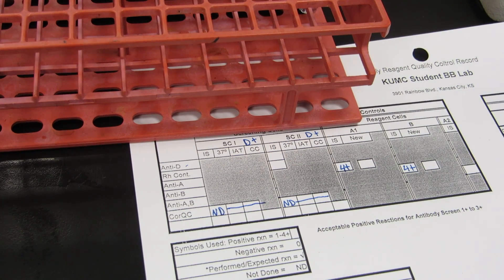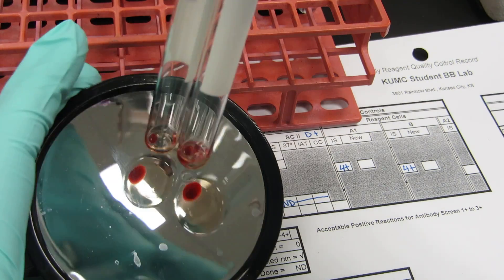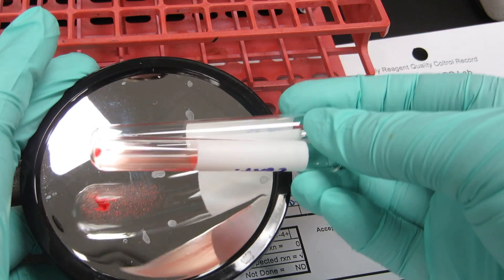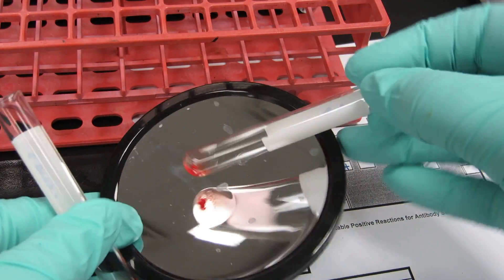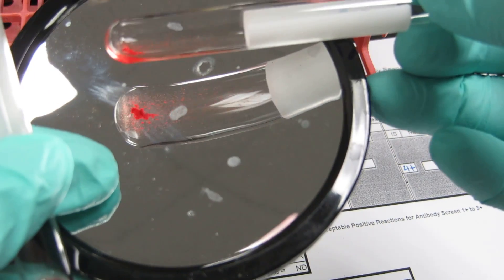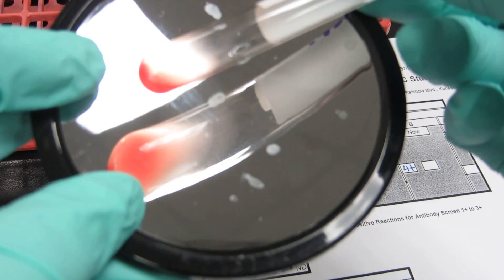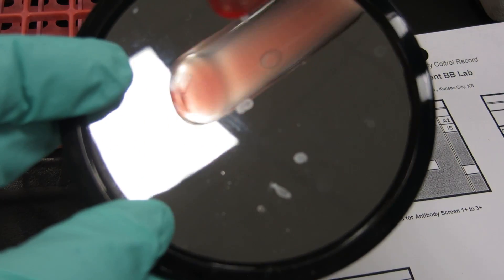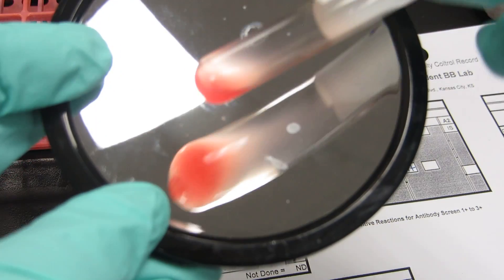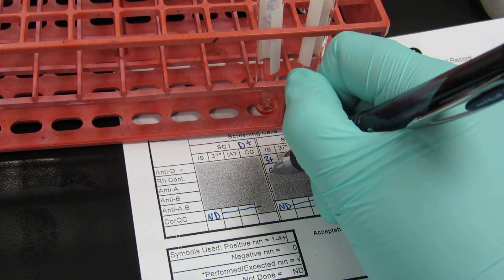Now let's read the D and the RH control. Remember, the RH control should be negative. My top tube is off — see how that's floating? That's a three plus. Keep going on the RH control — looking pretty negative. That's nice and smooth. So we got a three plus for anti-D and a negative for the RH control.